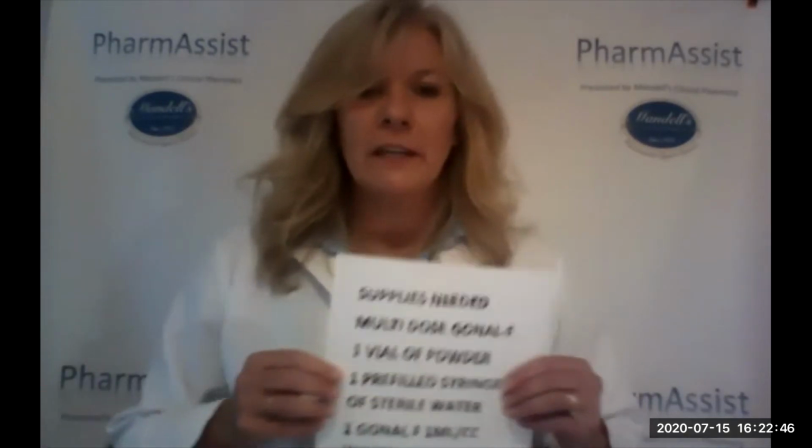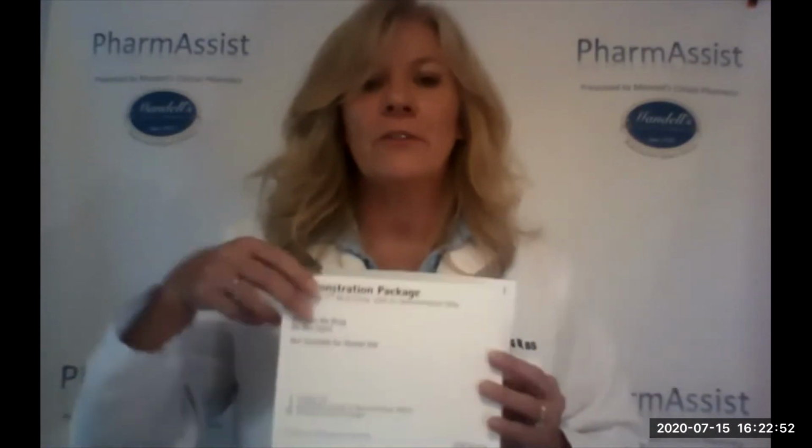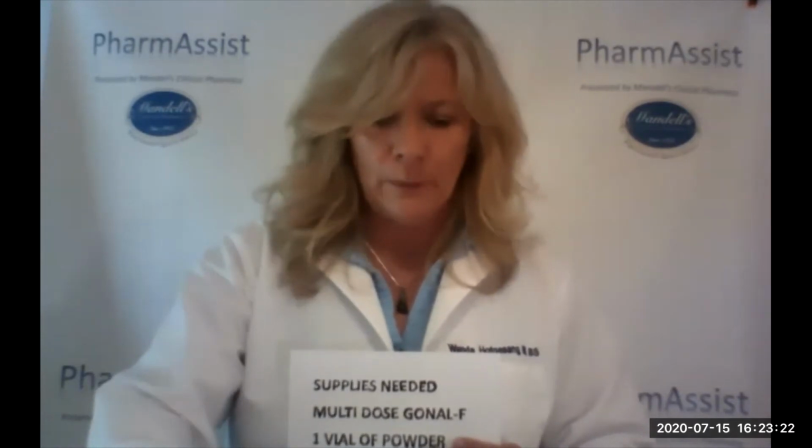So next step is your supplies that are needed for this medication. You're going to need your multi-dose kit. You may have a smaller box than this from the pharmacy, but this is a little demonstration kit of mine, but you will have a box similar to that. And in that kit, what you will have is 1 vial of powder. The medication of multi-dose comes in a vial, but it is in powdered form. A lot of times the nurses call it a powder, a tablet, a wafer. There's no wrong way to say that. There's just many different ways to say the same thing. So know that that's the medication, that 1 vial. And it's a multi-dose. We'll talk about that a little more.